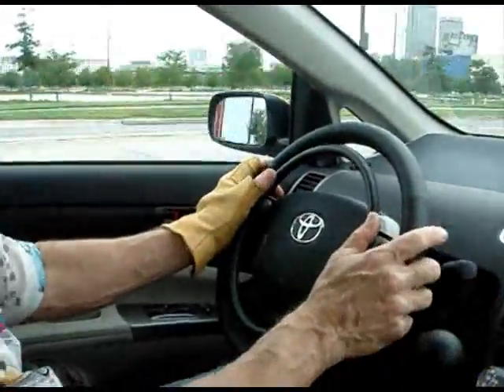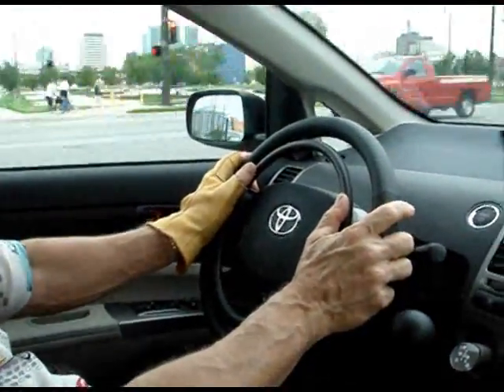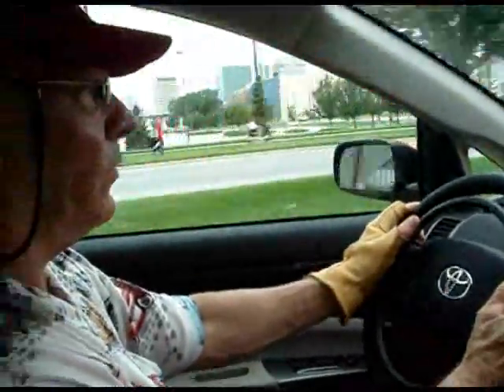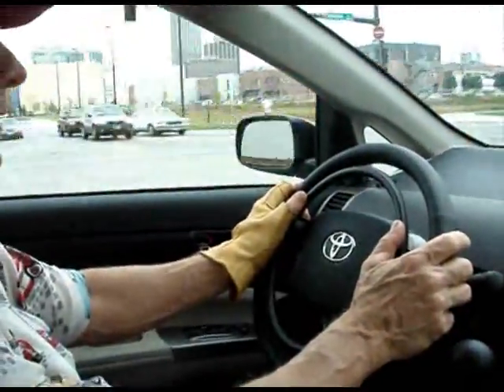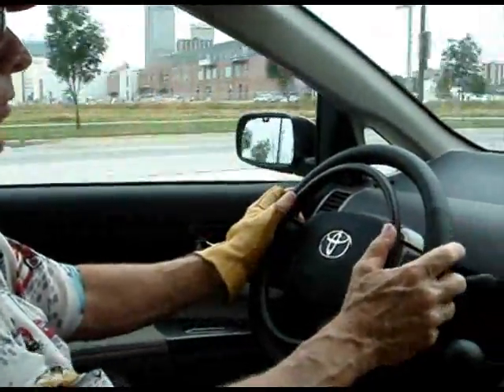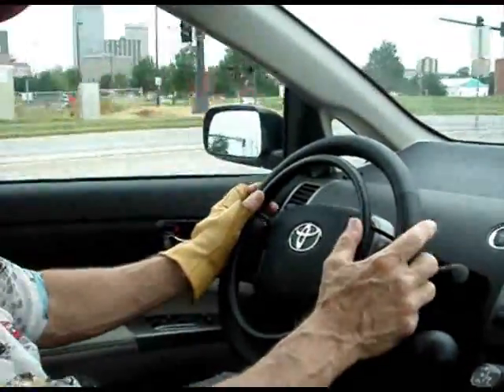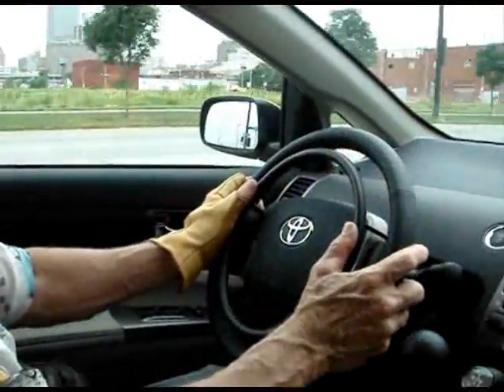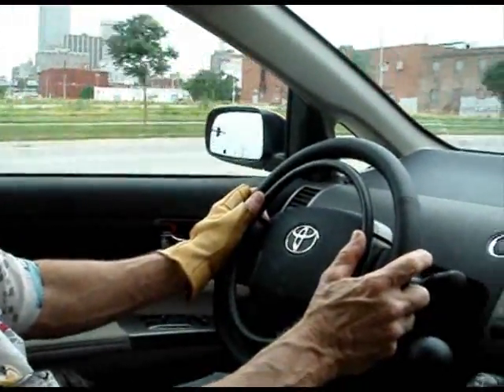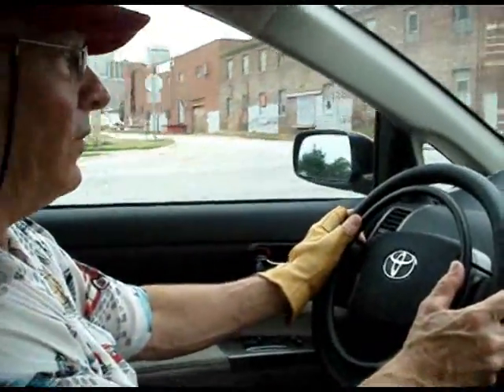That works very well. I feel comfortable, but it's taking a little getting used to. I'm going to let this guy get ahead of us here. But you can feel the vehicle slow down when you're decelerating by releasing the accelerator. Kind of gauge your speed to get to an intermediate speed by accelerating gently and then coming off the throttle gently rather than using the brake.